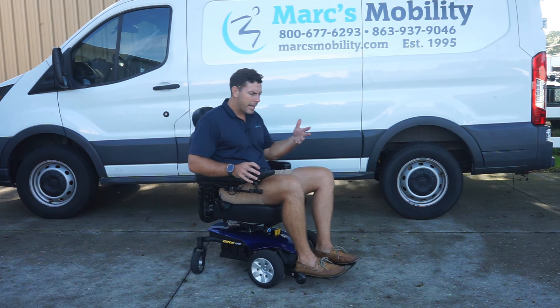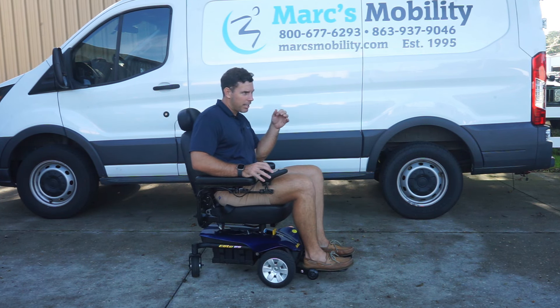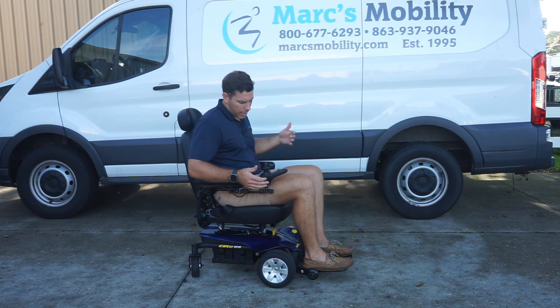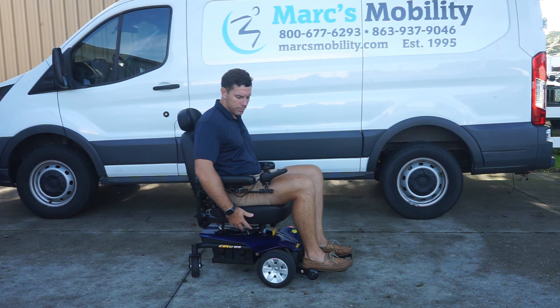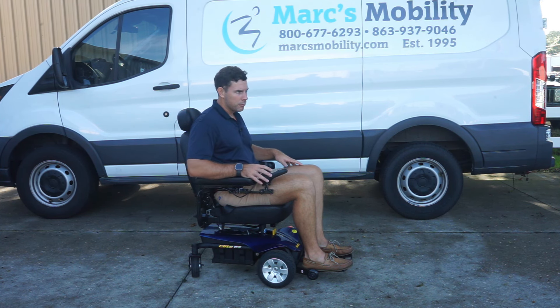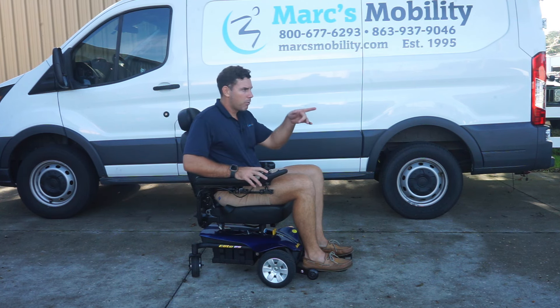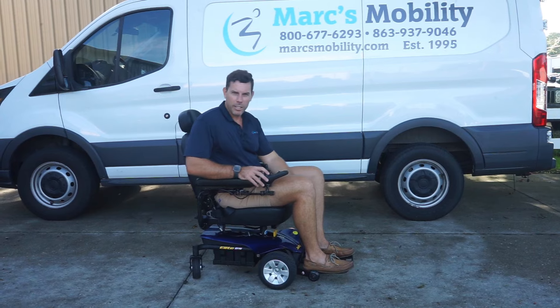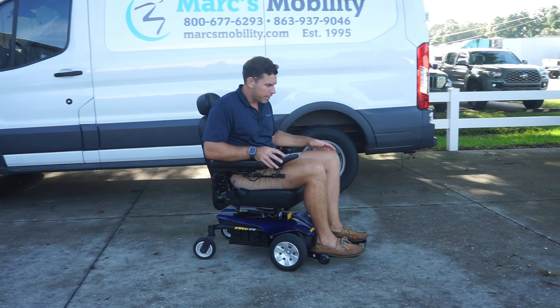This unit is not made to be an off-road type chair, but it will be able to go through this thick Bahia grass. I'm comfortable in it, and anyone up to 300 pounds should be fine. You can move the armrests out if you want a little more room. Overall it's a very nice basic chair — watch me go through the grass here to show you it can handle different terrain.